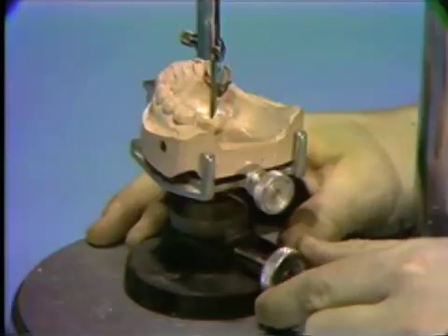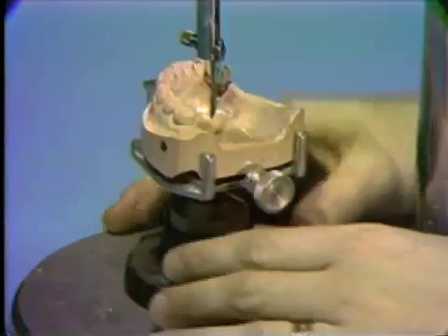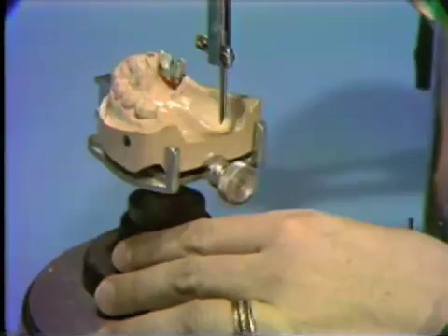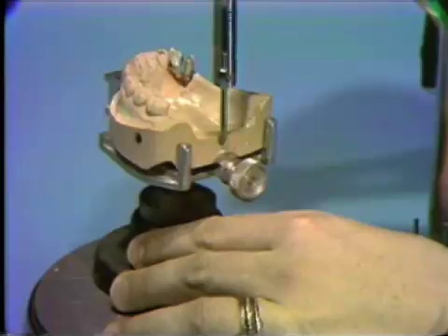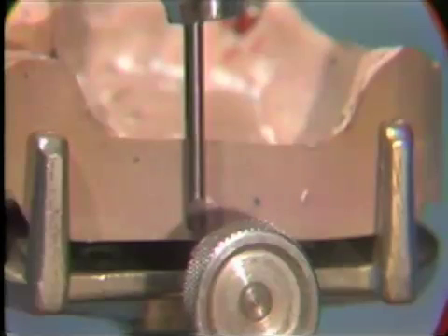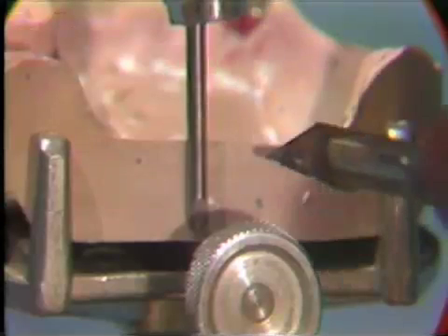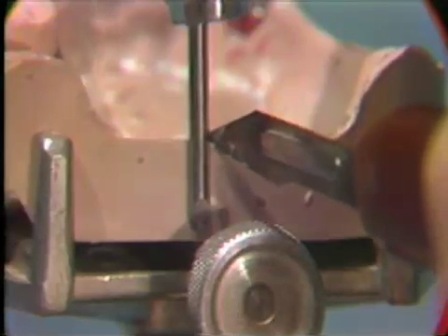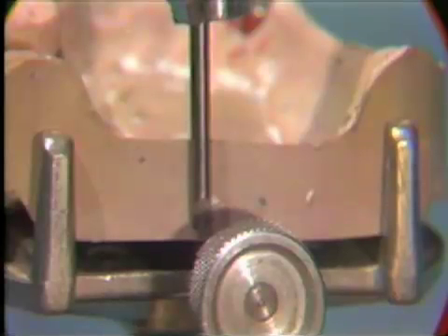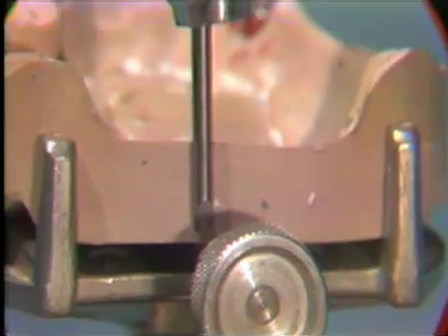Once this final path of insertion is selected, the cast holder must be locked to hold the cast in that position. Inasmuch as the cast will have to be removed and relocated on the cast holder during the wax-up procedure, it becomes necessary to preserve this path. This position may be preserved by marking the sides of the cast with orientation grooves, by placing the analyzing rod against the posterior and sides of the cast while you cut a groove in the cast with a sharp instrument.